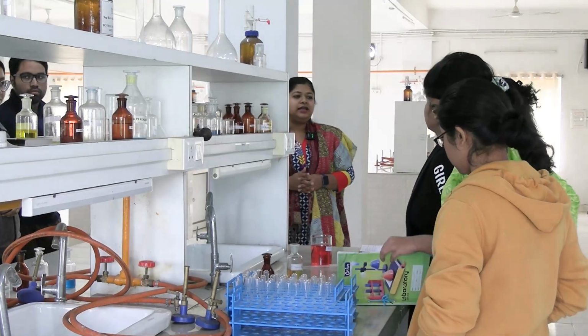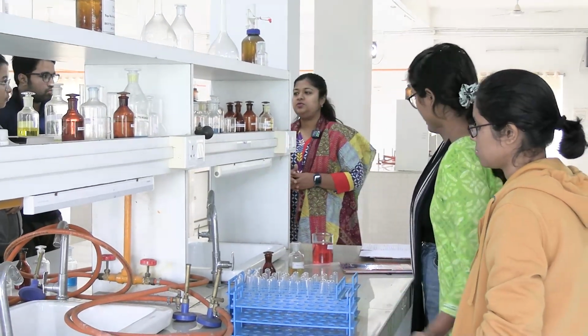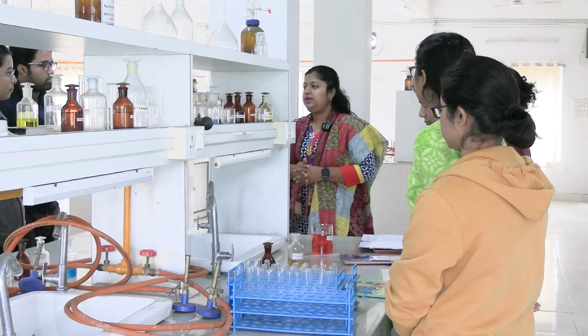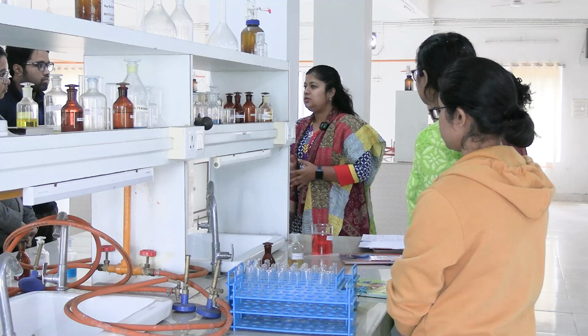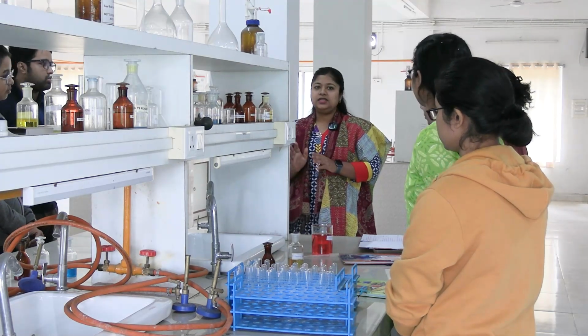What is the principle behind the heat acetic acid test? Denaturation of protein. Okay, what are the structures of protein we find? Primary, secondary, tertiary and quaternary. So what are the structures that are denatured by heat? Secondary, tertiary, quaternary, other than primary.